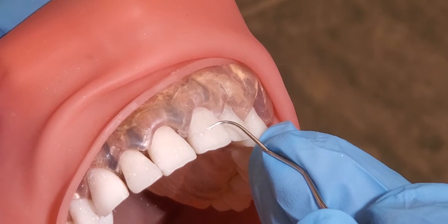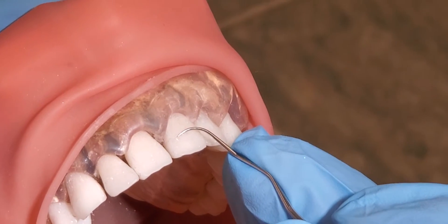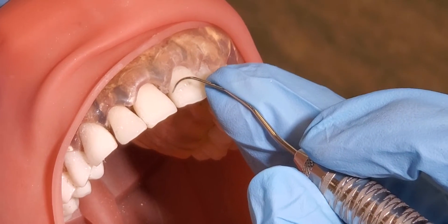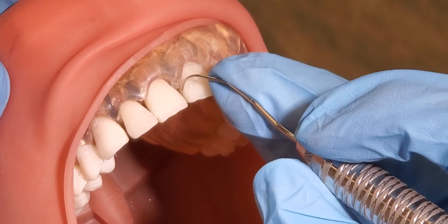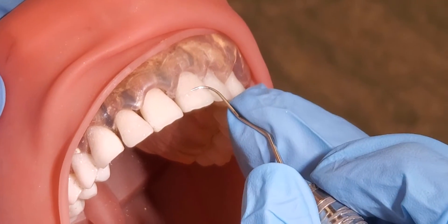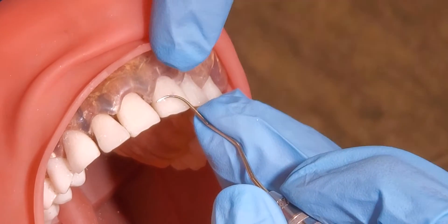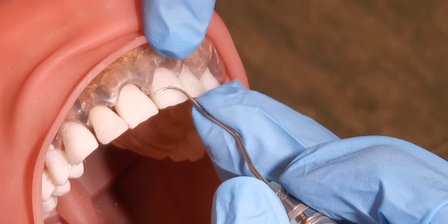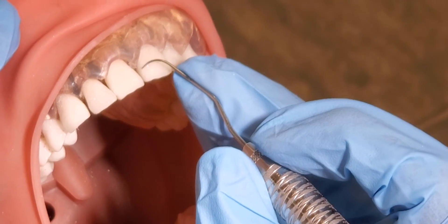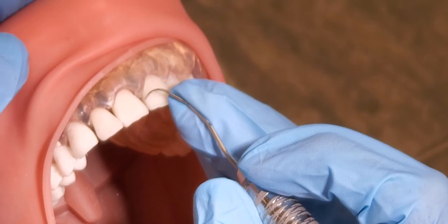Once I start with the tip third in the middle of the tooth, I'm going to slowly, while keeping my tip on the tooth, pivot and handle roll to keep that tip third on the tooth as I go around. We have to go really slow, especially as we're learning, because if we start to go too fast, you can see the tip of my instrument actually isn't on the tooth anymore. So I need to stop, roll a lot more before I keep moving, and now that my tip third is back on there, I can keep going.